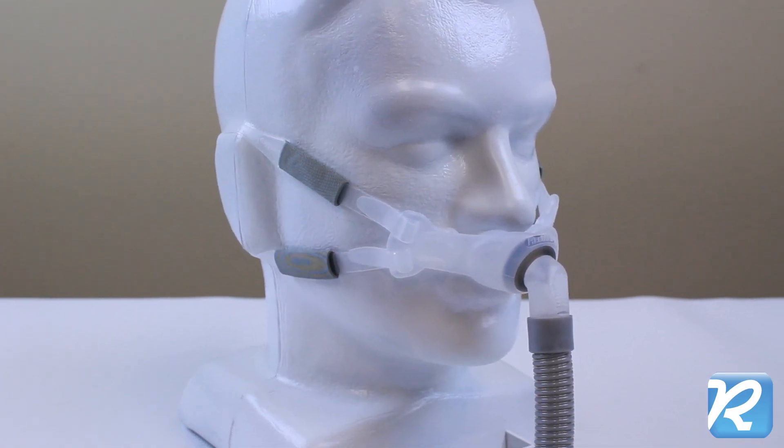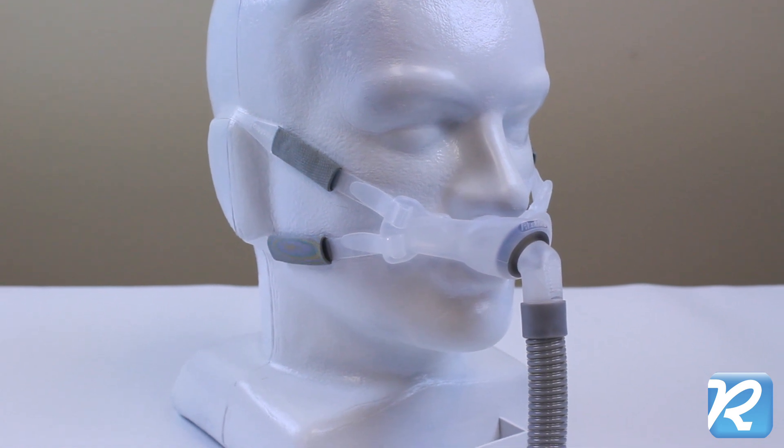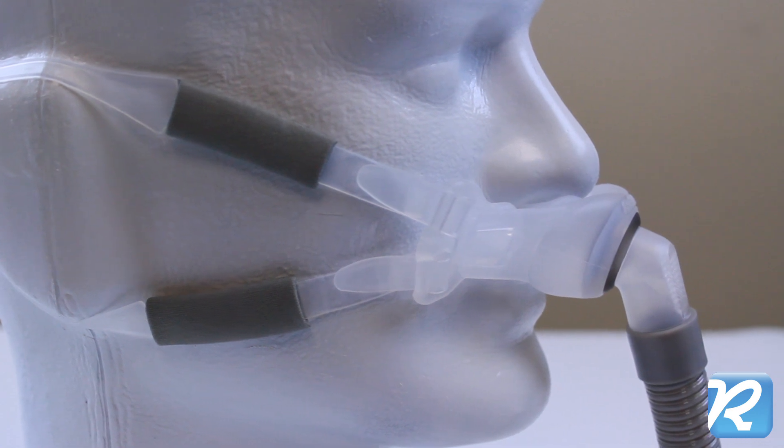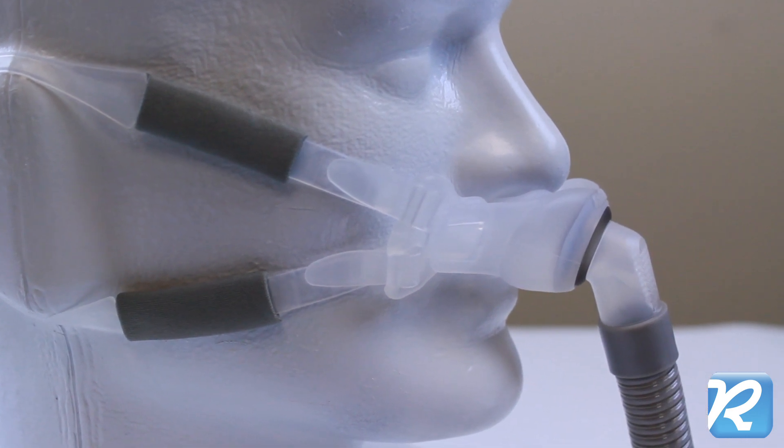ResMed's SwiftFX Bella Gray Nasal Pillow CPAP Mask distinguishes itself with innovative Bella ear loops that hold the dual wall nasal pillows in place.